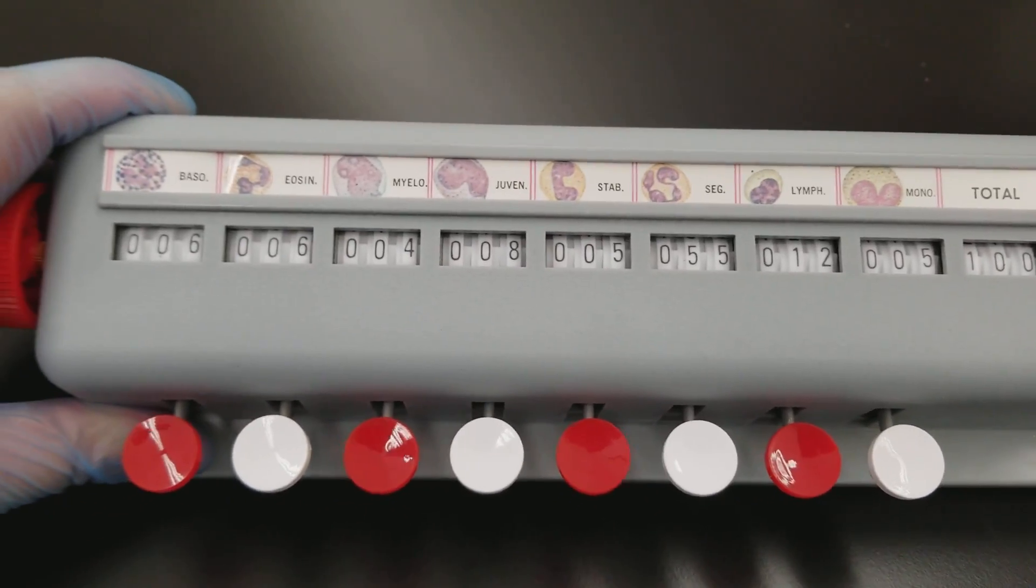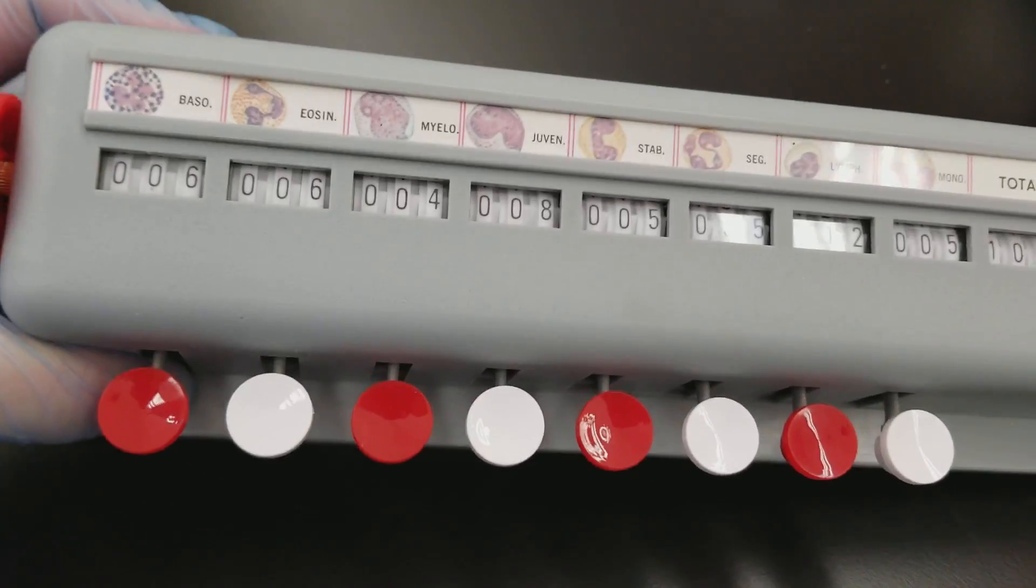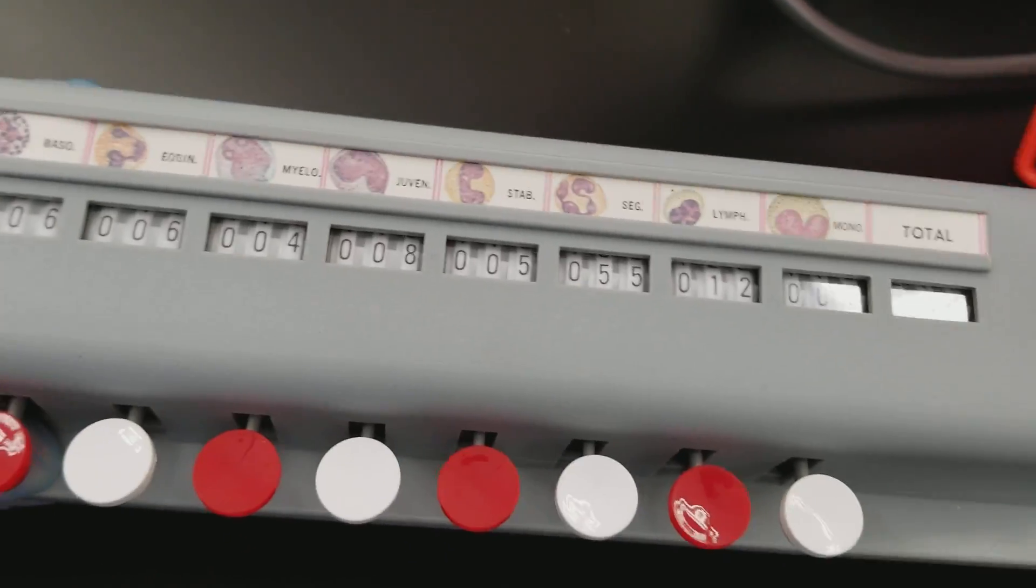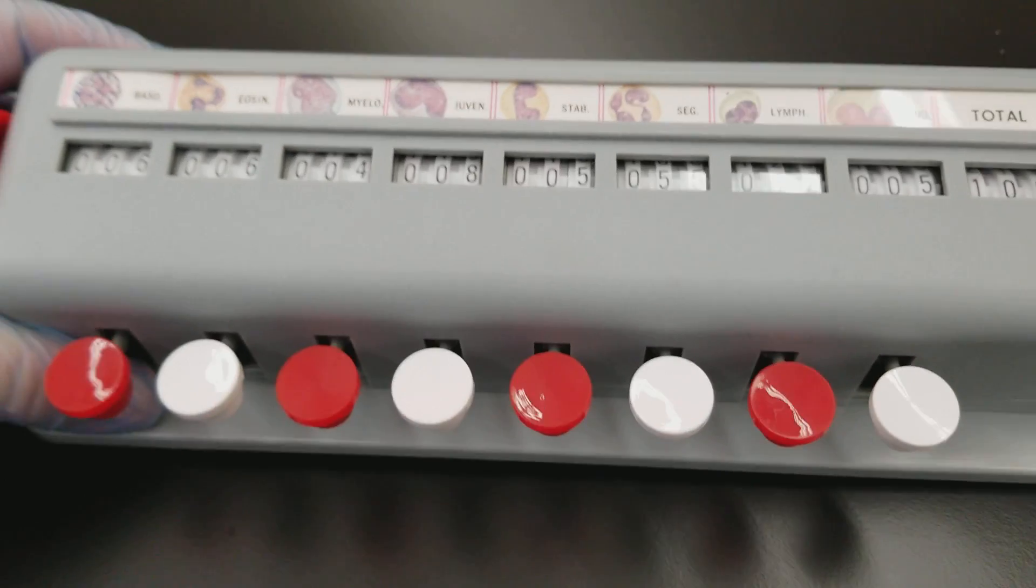In order to look at the results that you have, you can compare them to your CBC printout or what's on the screen.